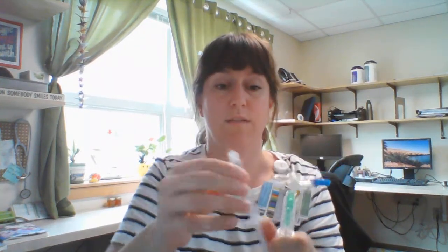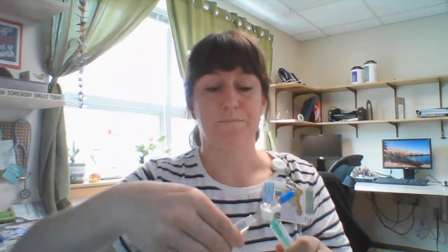After giving the dose, screw the 3 mL syringe right back on and repeat the process — pull or push to fill, then push back to 1.7 mL to have your second dose ready. You can leave it attached or disconnect it; I prefer to disconnect so I know with certainty the dose is set. The remaining pre-filled syringe can be used for future doses as needed.